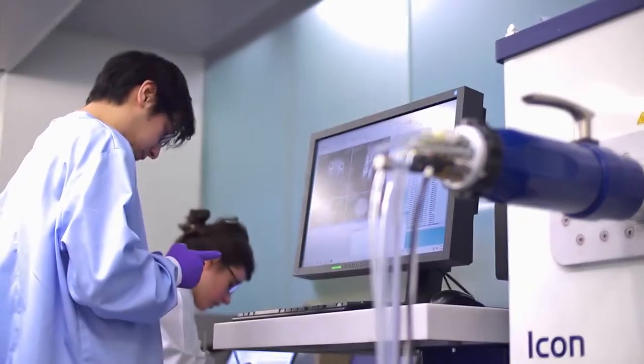I think there will be a move towards higher field systems, that's what we've seen over the last decades, and I can't see any reason why that won't stop. The real challenge that I'll throw back to the engineers is we want high field systems that look like this.